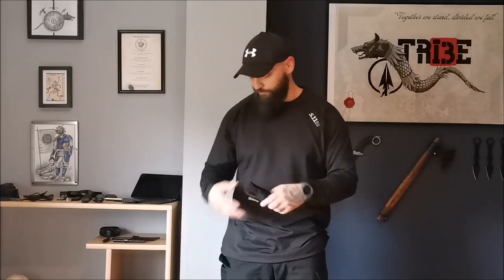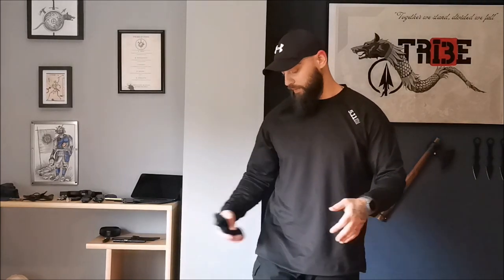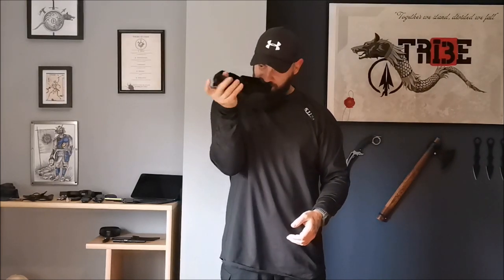Let's say I have the tourniquet in my right pocket — the dress code I have now permits this and the lateral pockets allow me to deploy it from there. If not, there are special holsters for tourniquets, or maybe you have a small sling bag that always comes with you. If I need to take it, I take it from there. Let's say I have the left arm injured, brachial artery, I am bleeding massively. I have many videos about this — I only want to show you quickly so you understand the drill I will teach today. I can use my mouth to assist as well.